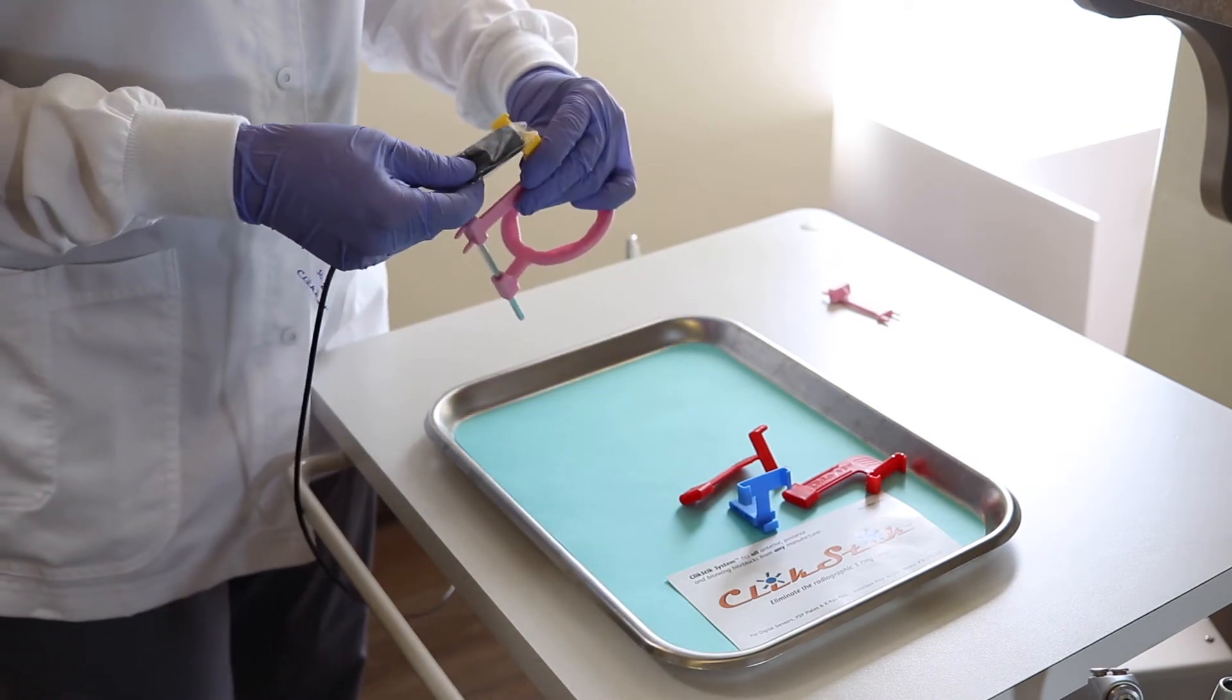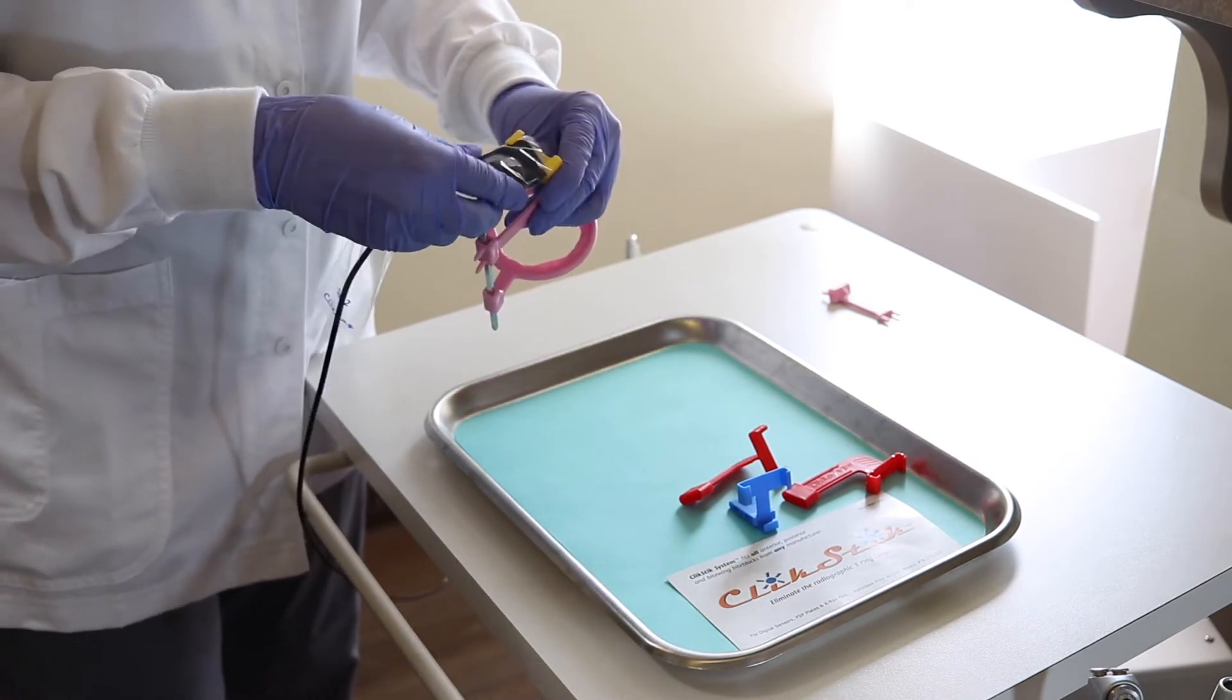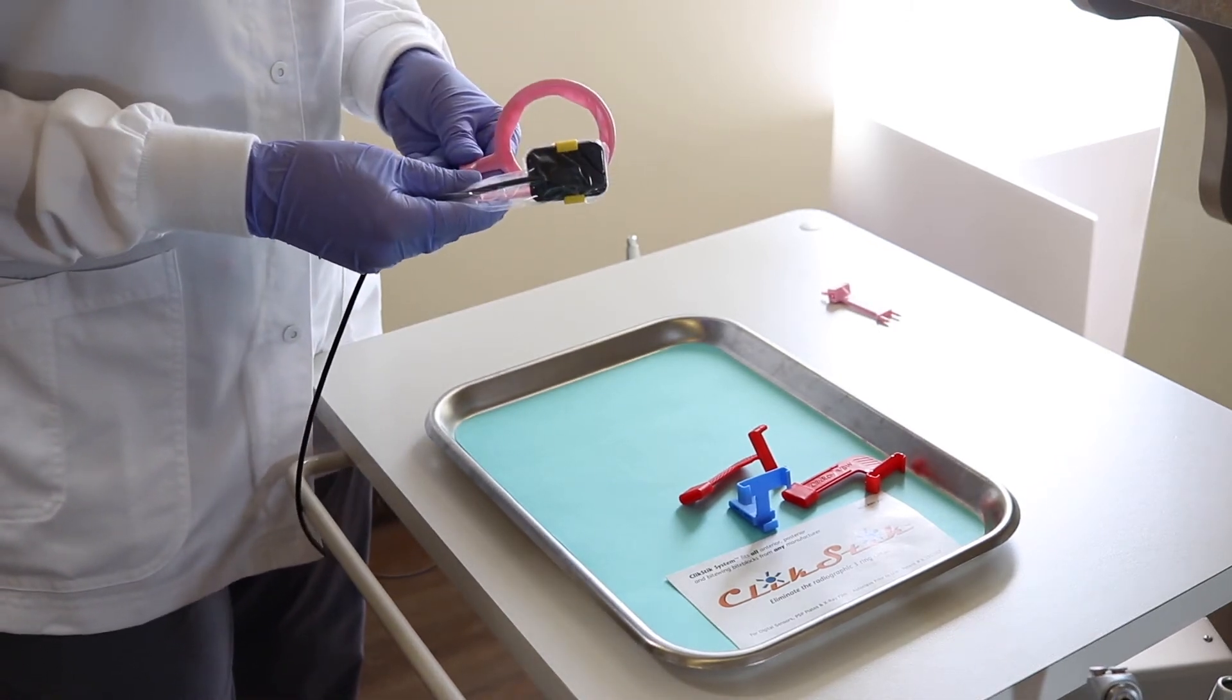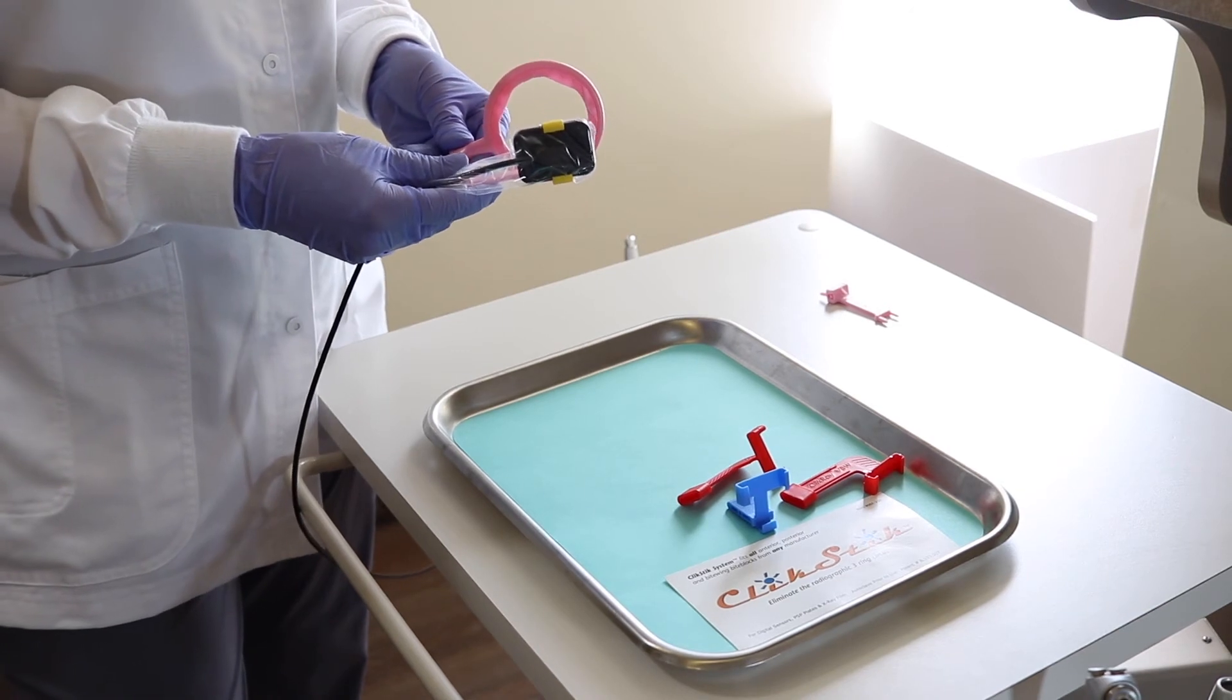So we're going to bring this over here and you can either snap or slide these in. I'm just going to position this in here and slide it in gently and this is how you would end up positioning your posteriors.